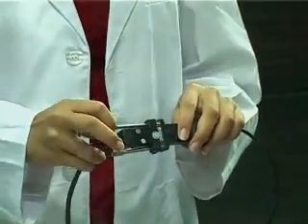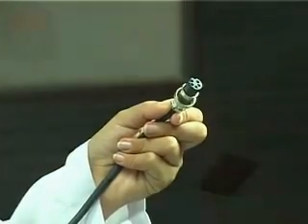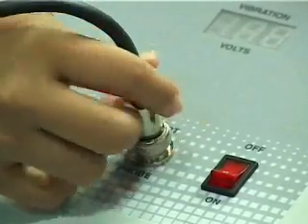Connect the VPT probe at the appropriate slot. Do not over-tighten the screw.